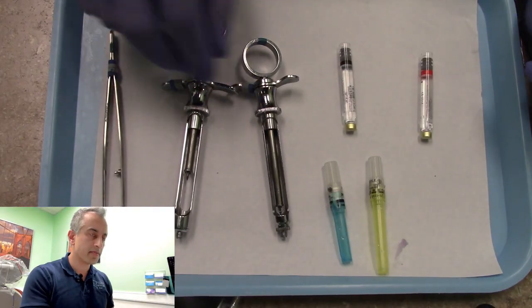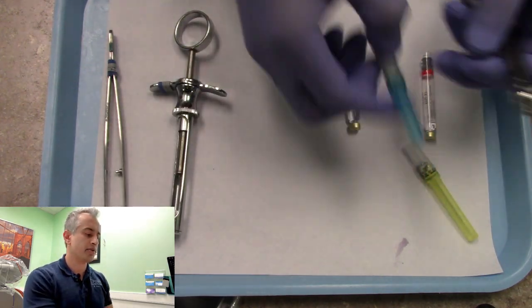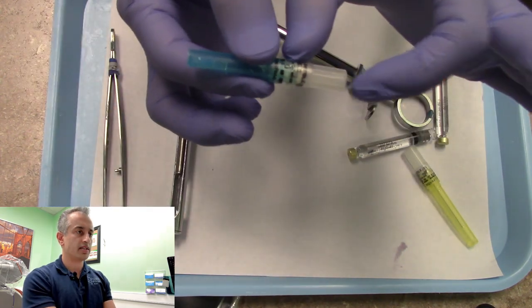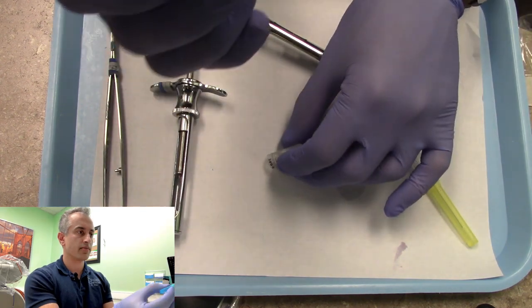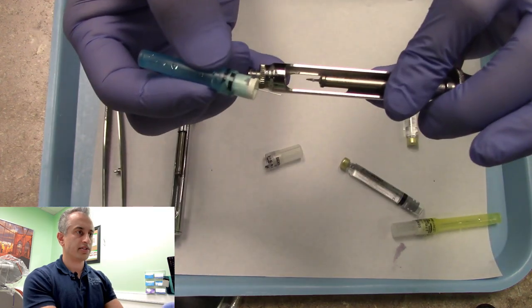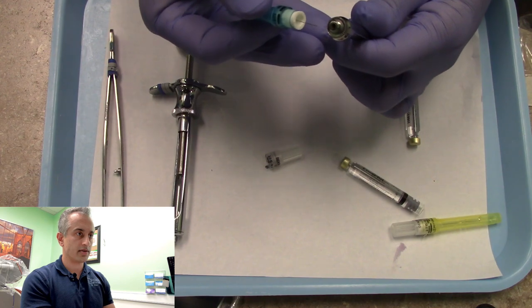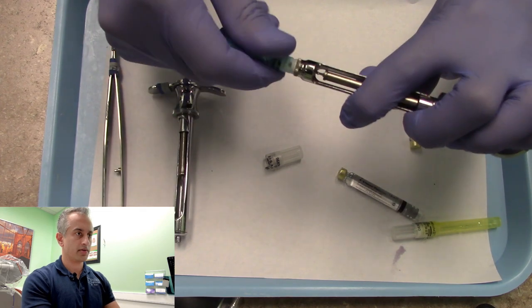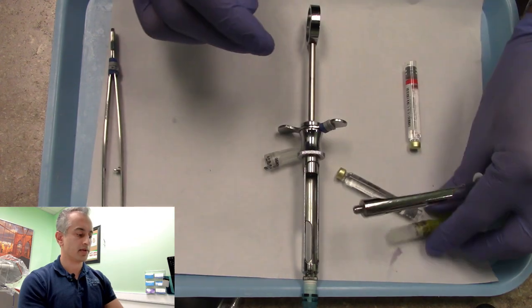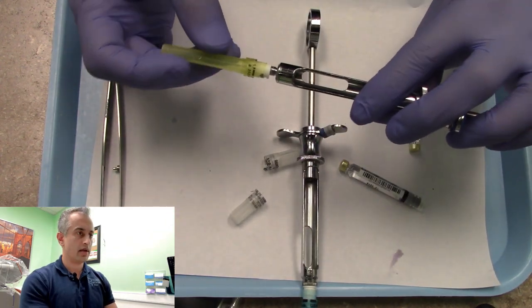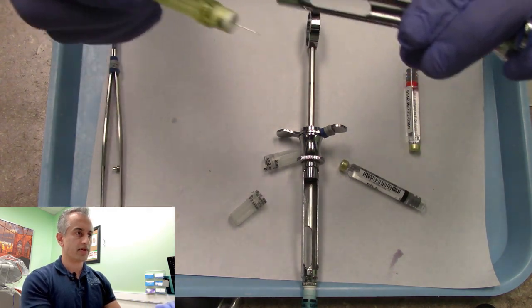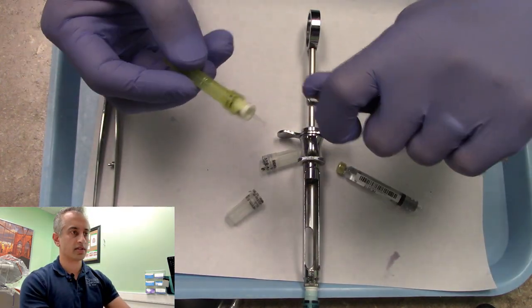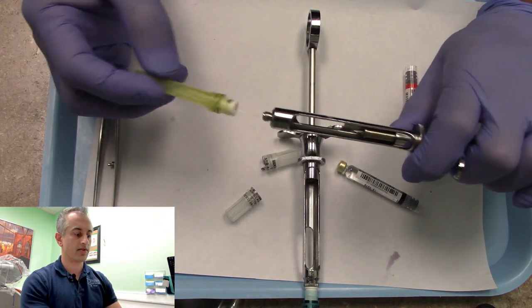Here we have our instruments and cartridge. We're going to uncap our needle, which has a blue cap for the needle end and another cap for the portion that goes into the syringe. All we have to do is insert that needle into the tip of the syringe and twist it on. Look how far away my hand is from this—it's going to be very hard for me to accidentally poke myself even if I miss.